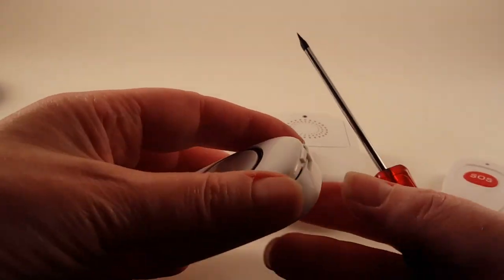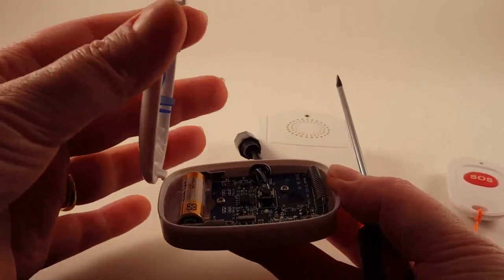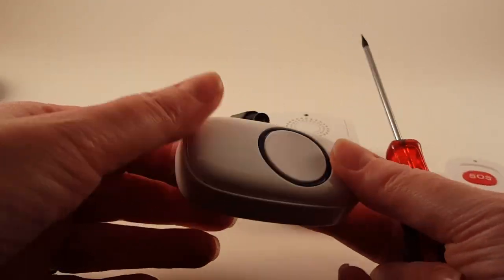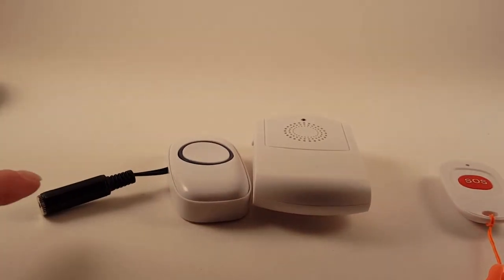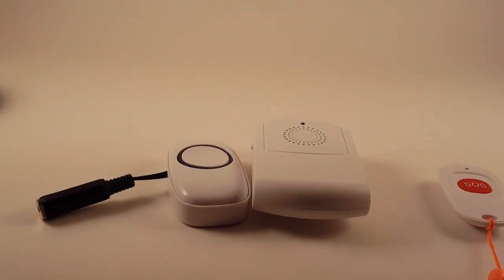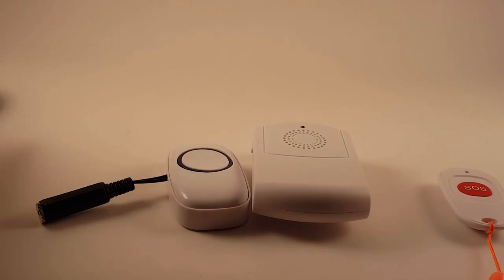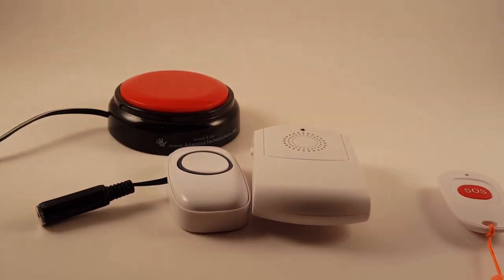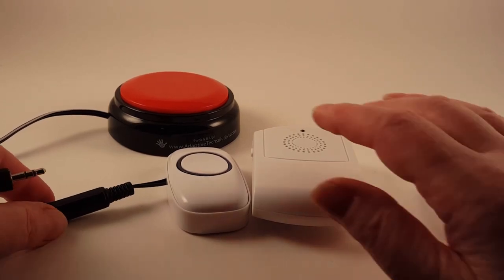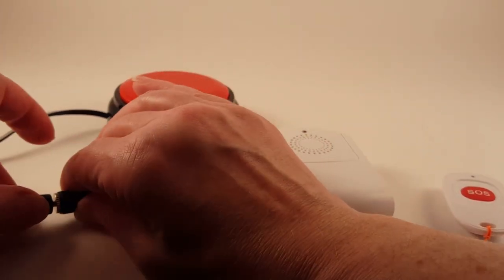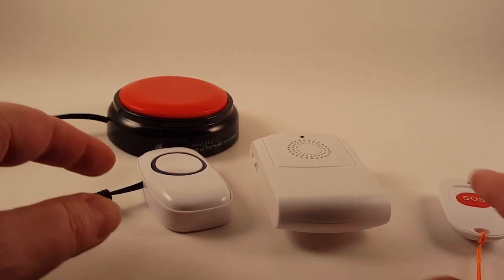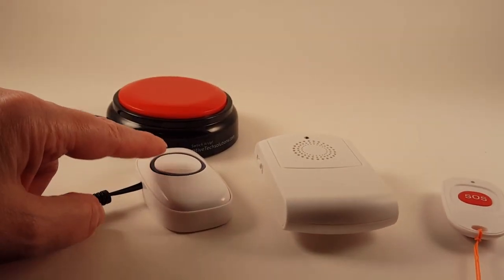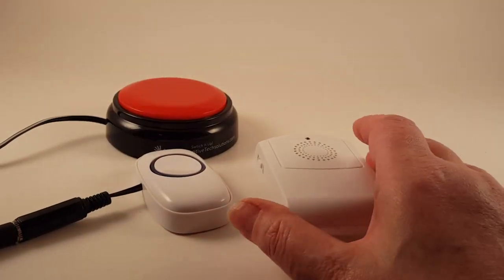The button has a little place right here that you can open up, and that's where your battery is going to go, but it also has a jack on it so that if you have somebody who doesn't have good hand function, you can use a switch. There's a variety of switches out on the market, so this will work with any of your 1/8-inch standard switches so that they can use this instead of using this button to make the chime go off.